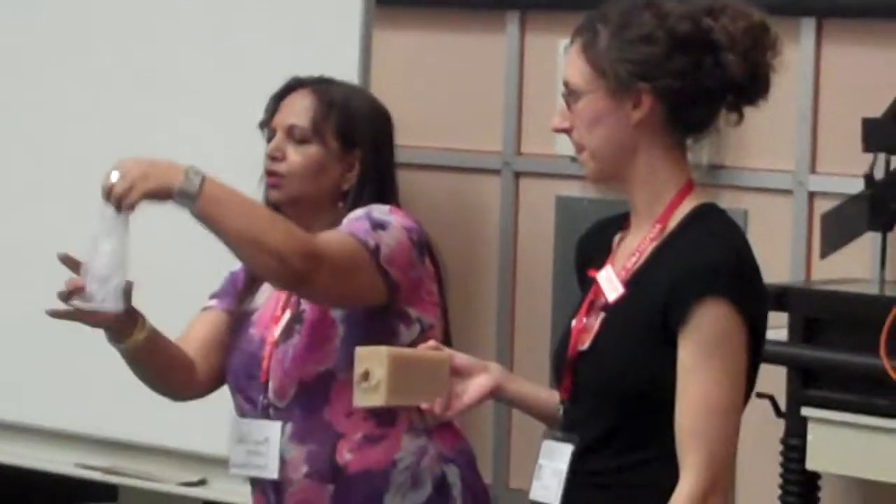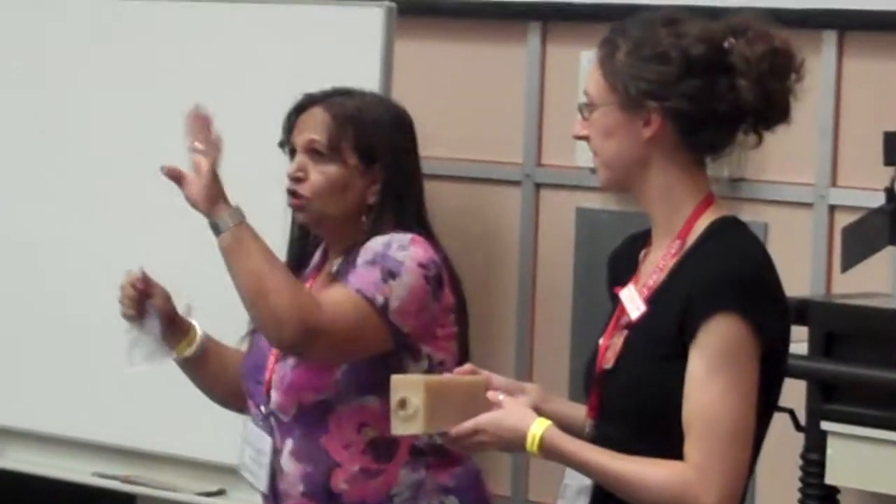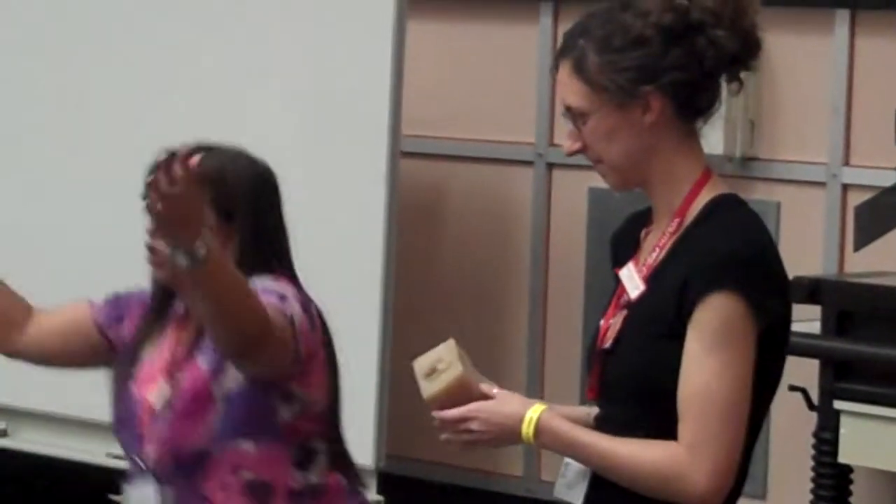Remove from the packet and roll. Hold the condom in your dominant hand, bring the edges of the ring together. You can squat, you can put your foot on a chair, on the toilet seat, on the car seat, on the coffee table, on the kitchen table — wherever you are. You can lie back, or you can sit at the edge of wherever you are seated. That's how you could do it.